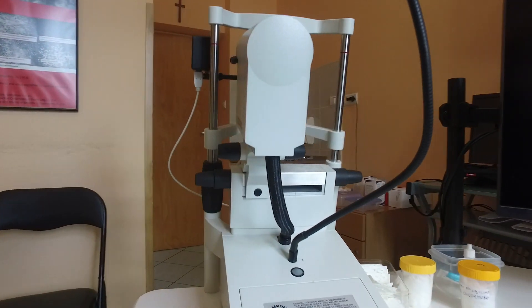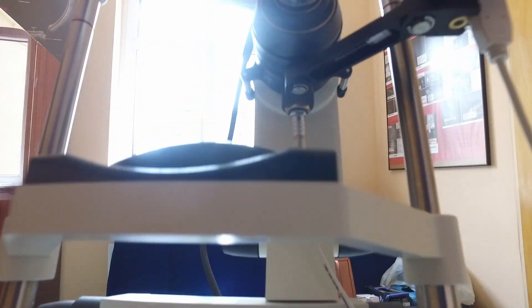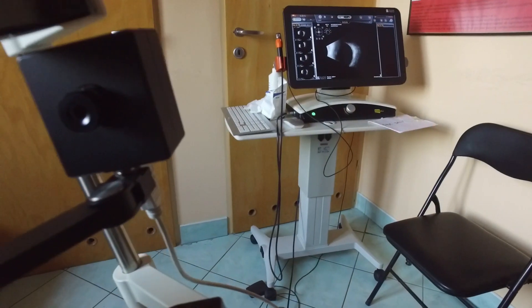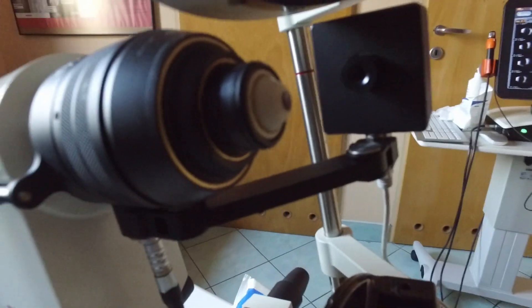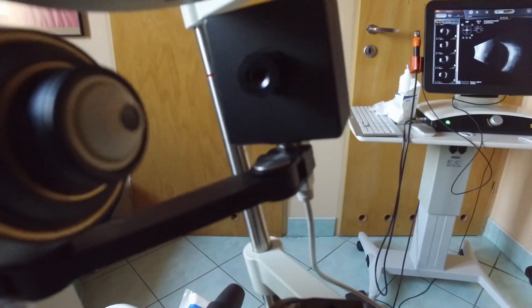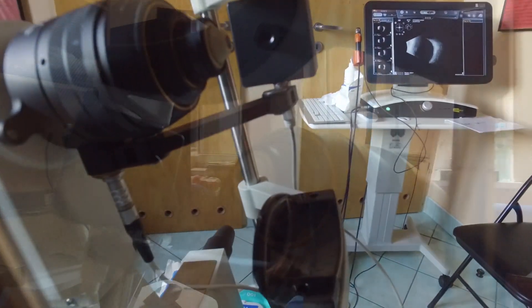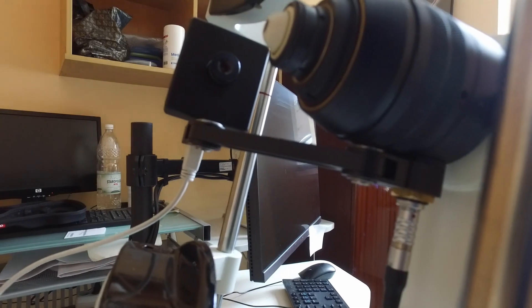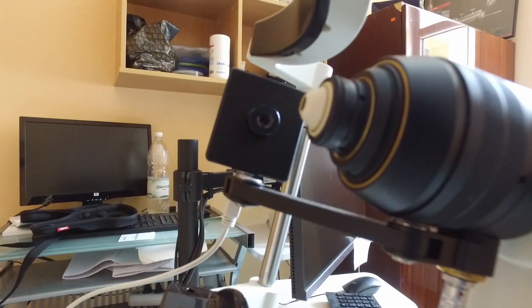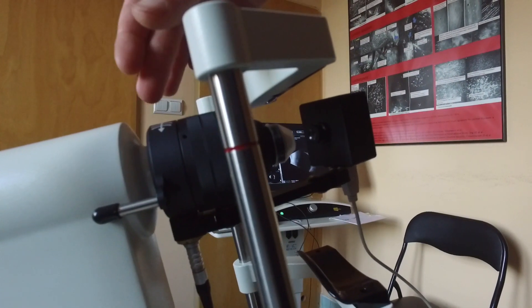It's easy to clean and you have the external fixator which is quite useful. In front we have the cables and the manual positioning of the chin rest. This black box is the external camera — it's very useful for making sure where you have the eye. This central white part is the lens. It has to be immersed in water, so we usually use some gel, then you put a sterile cap on it, and then some gel on the cap to prevent erosions.